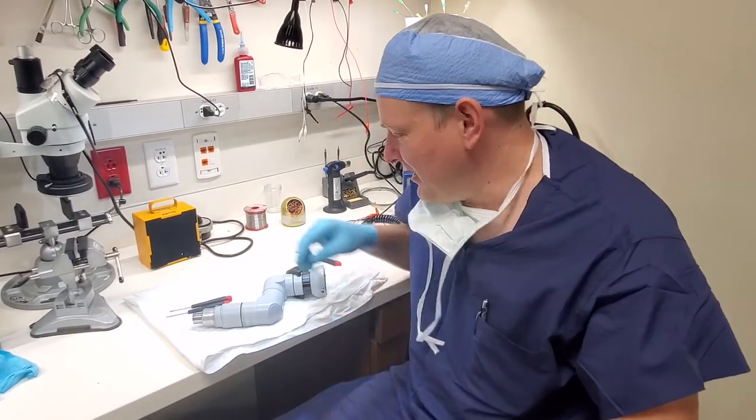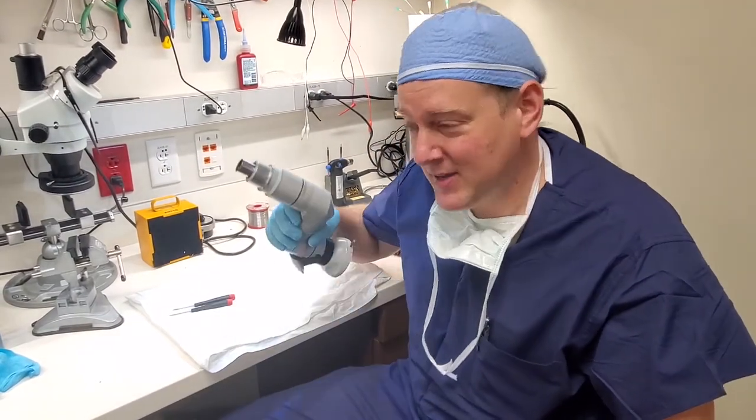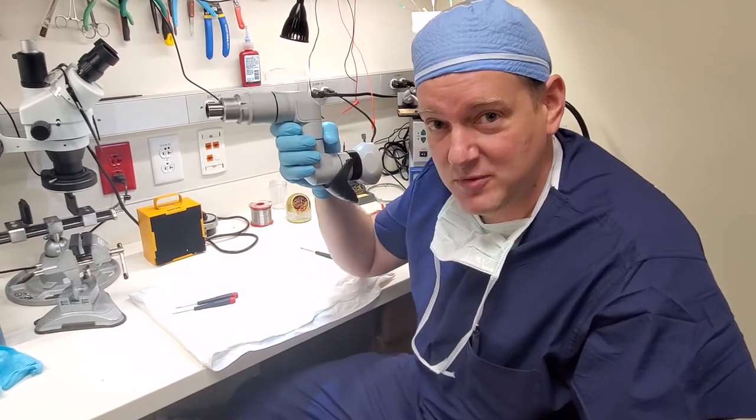Hey everyone, welcome back to A Better Biomed. Today I've got a special for you guys. We're going to be taking apart the Zeiss Observer 2.